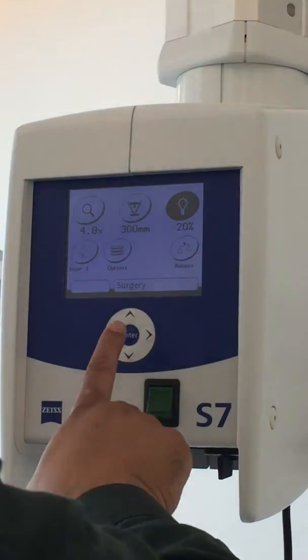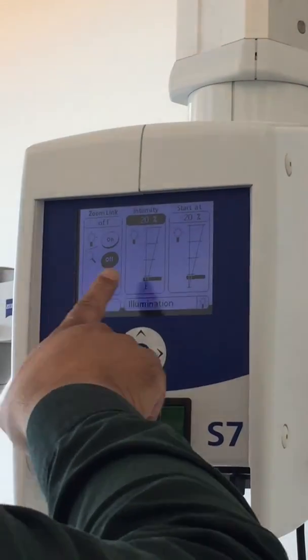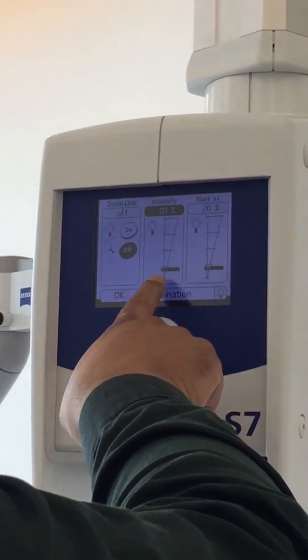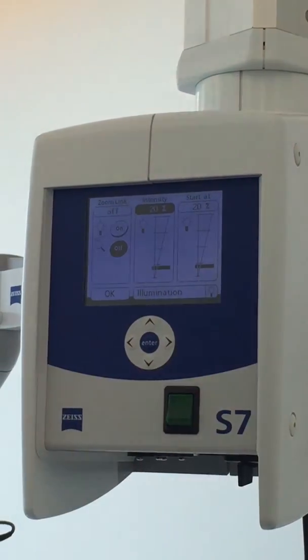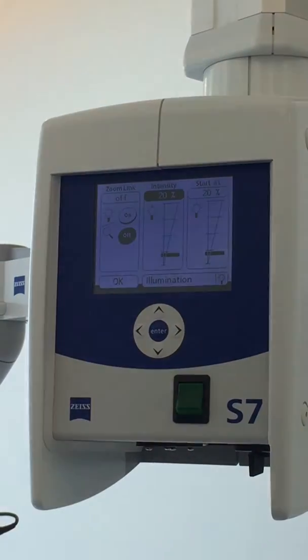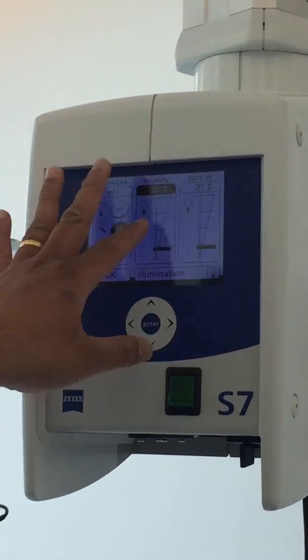Start up light intensity is now 20%. So you can come here and sometimes you can keep it at 25. Some doctors want it at 30, 40, 50. So the start up light intensity. And this is the current light.